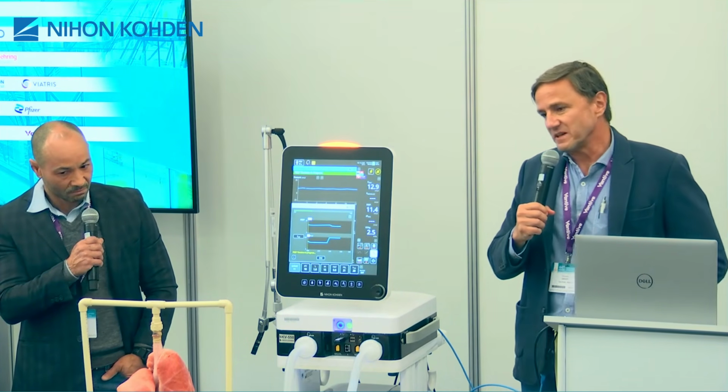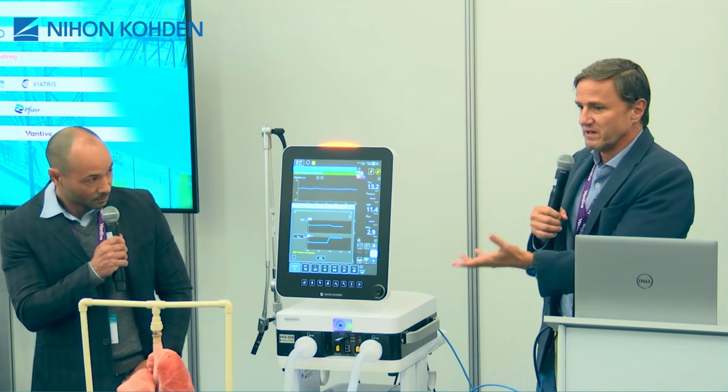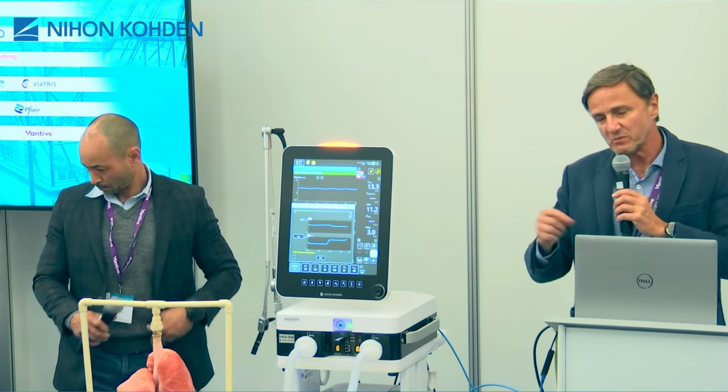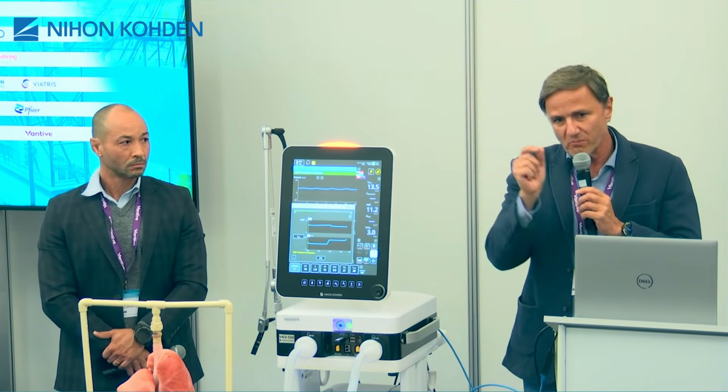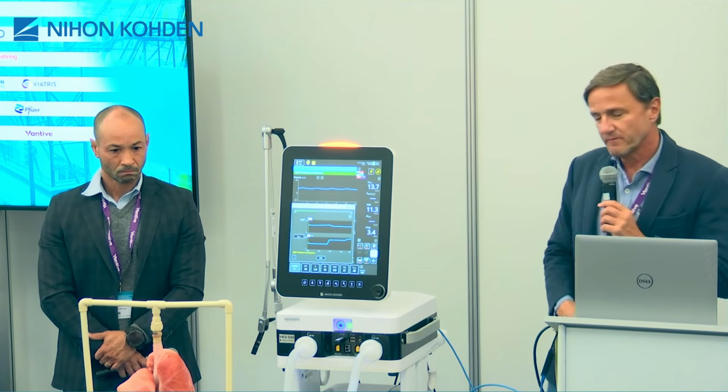Exactly. So we consider this much more as a recruitability assessment maneuver. And then if you want to do PEEP titration, we recommend that you do a more precise maneuver, 2 by 2 centimeters of water.